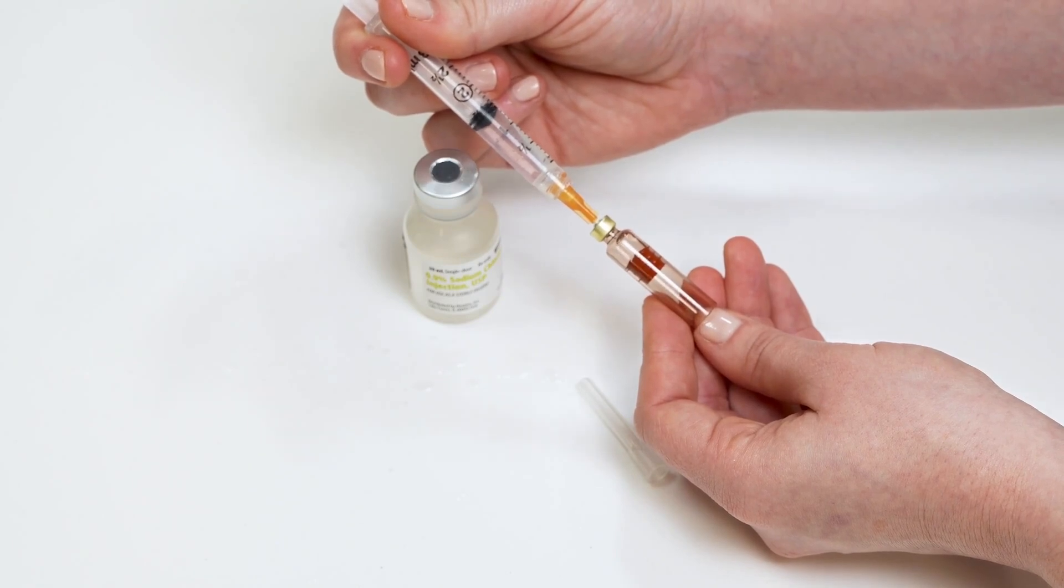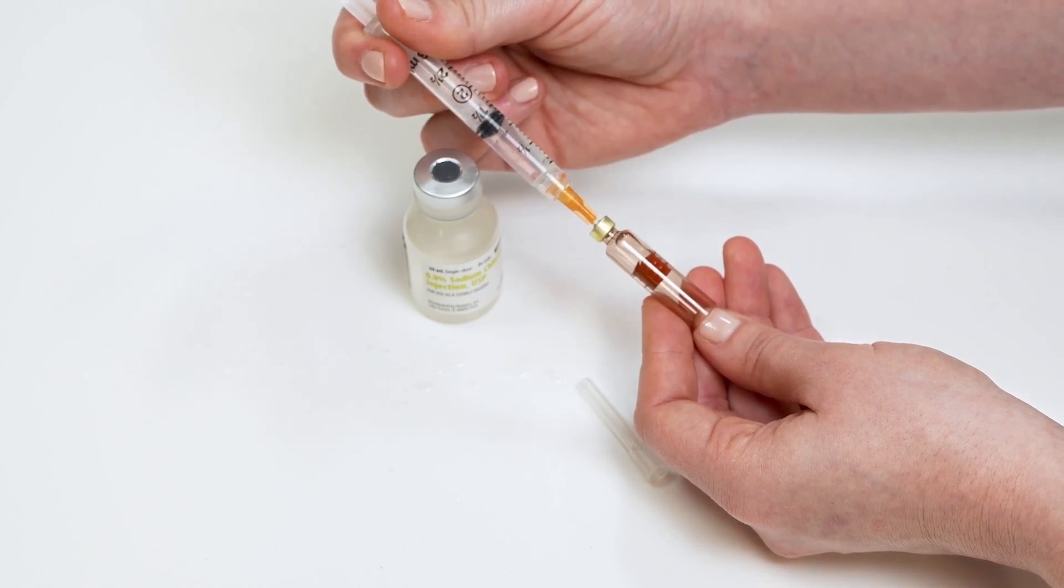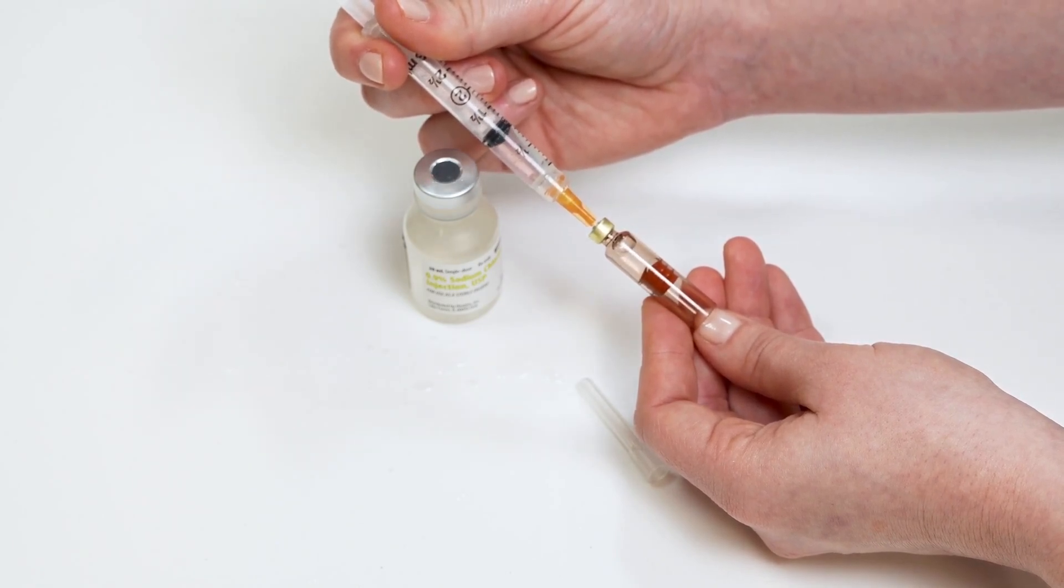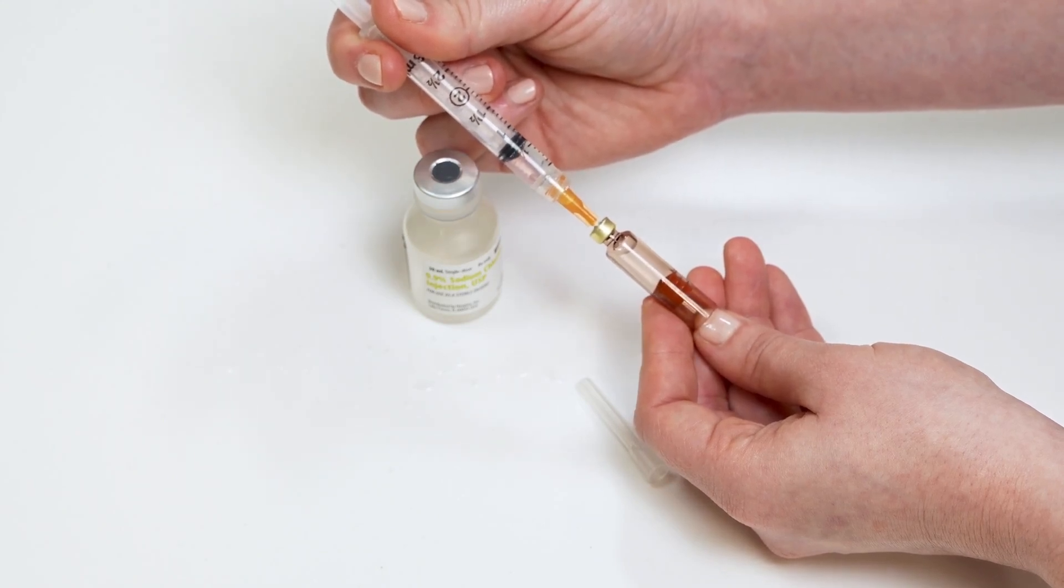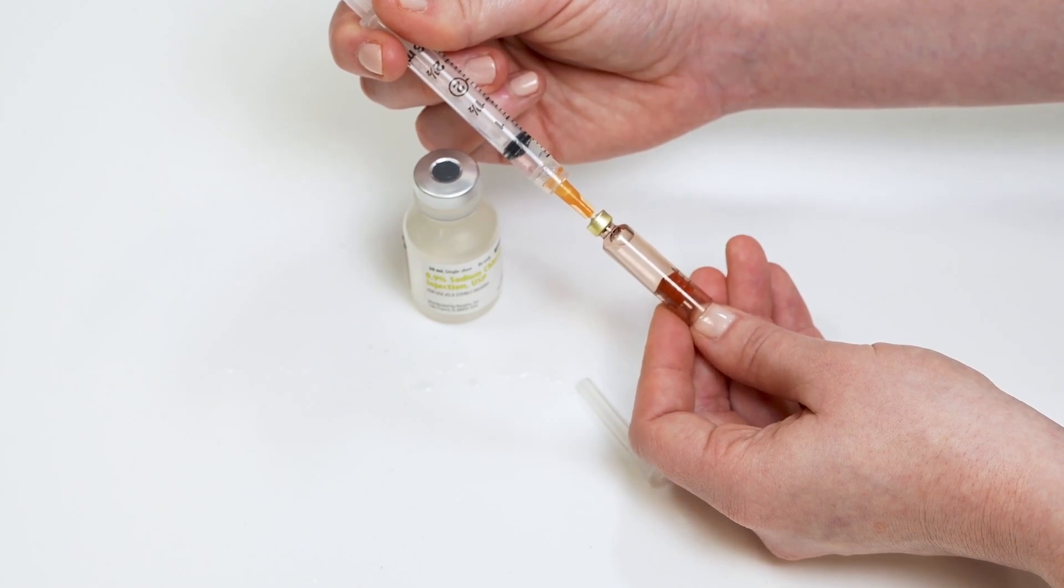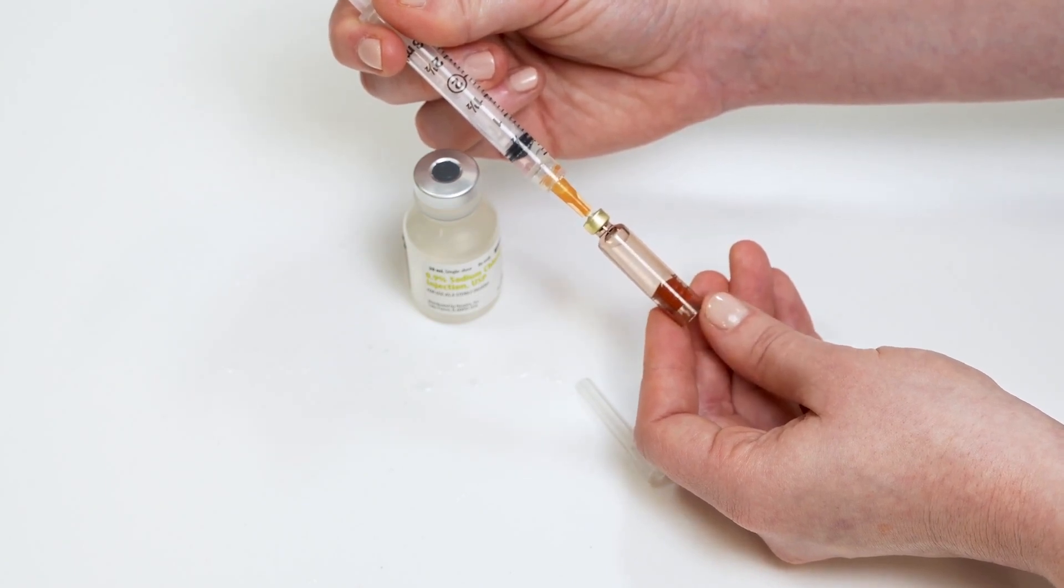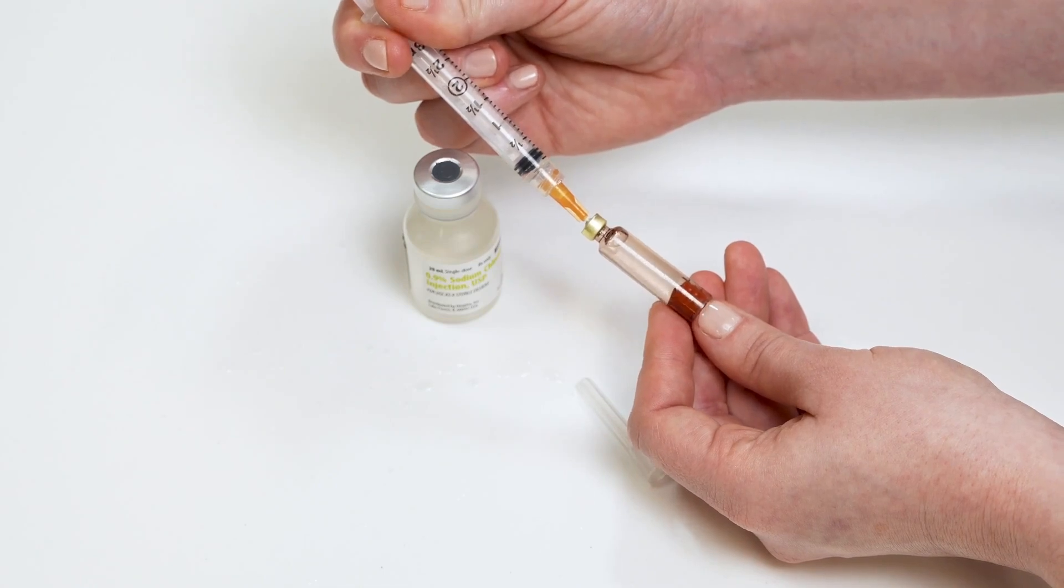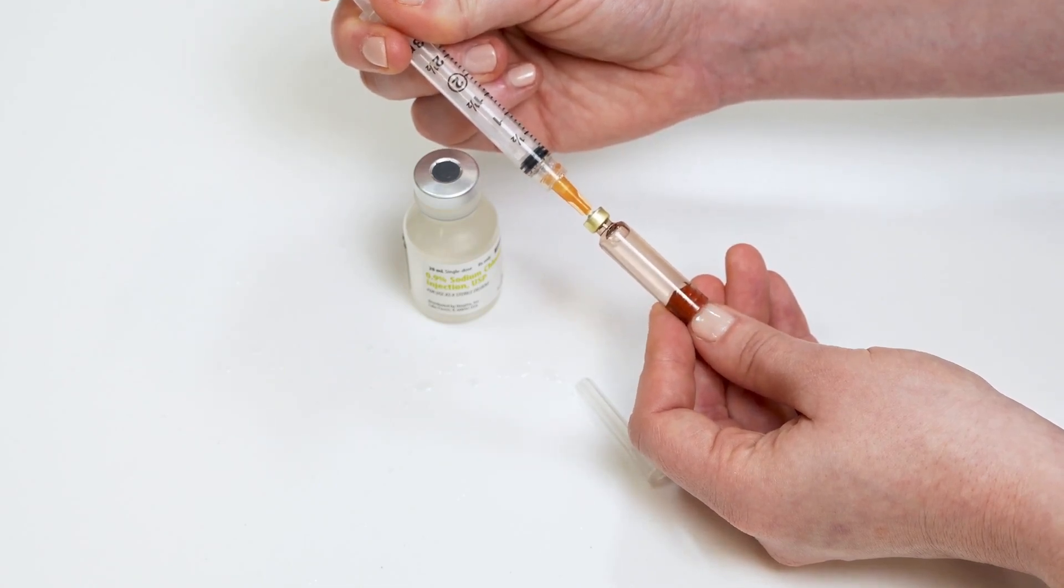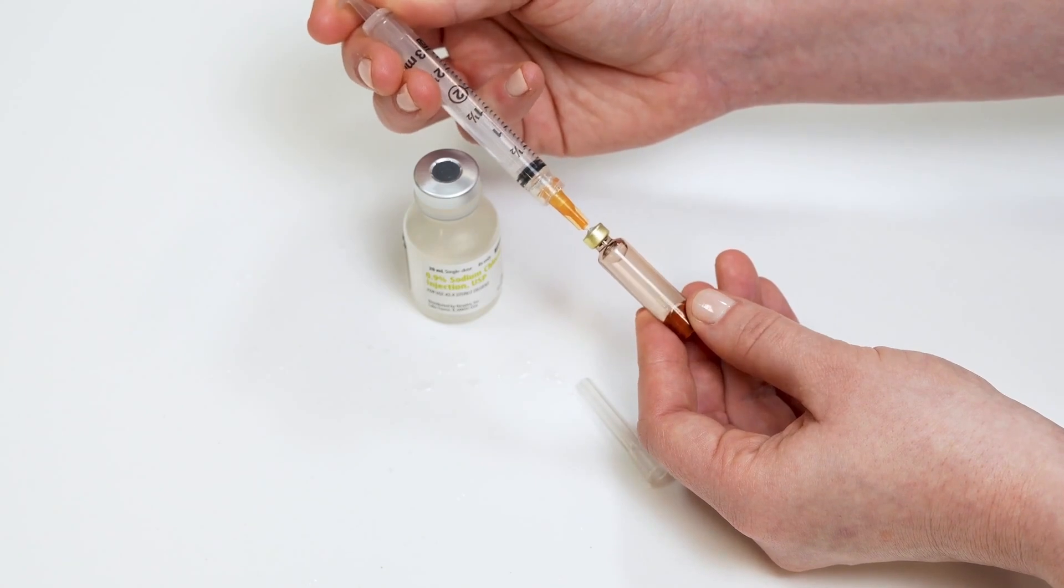It's important not to overfill the cartridge. The rubber plunger in the back might get pushed out if too much insulin is transferred. If this happens, dispose of the cartridge and use a new one. The cartridge does not hold more than 1.8 mls of insulin. Remove the needle from the cartridge and set it aside.